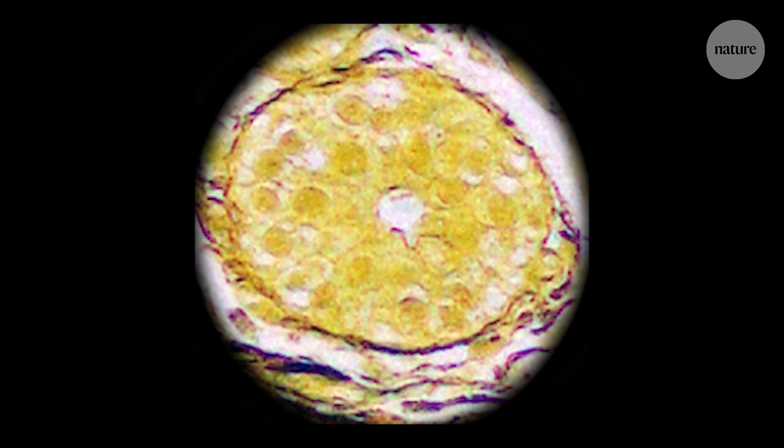It was quite amazing that we could just see these cancer cells through a conventional microscope, so a normal microscope. We could really distinguish these cancer cells from other surrounding cells, including the very cells that cancer arises from.